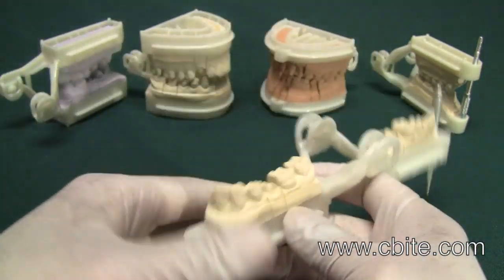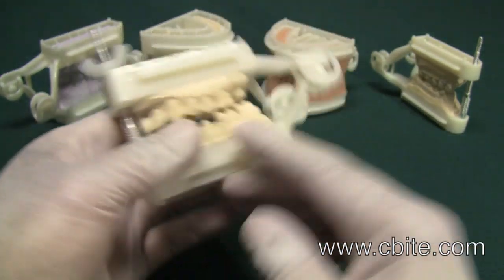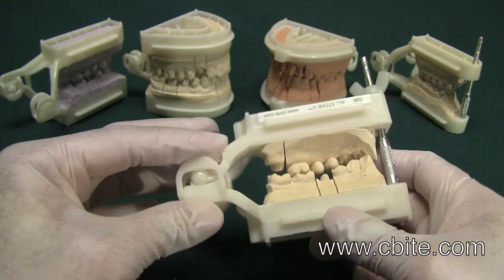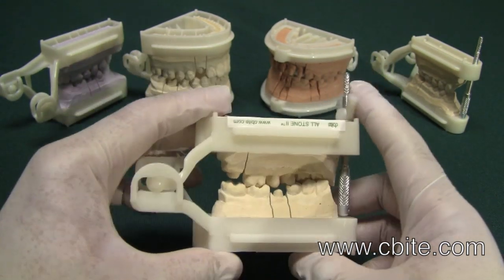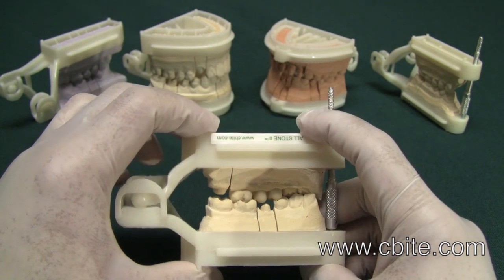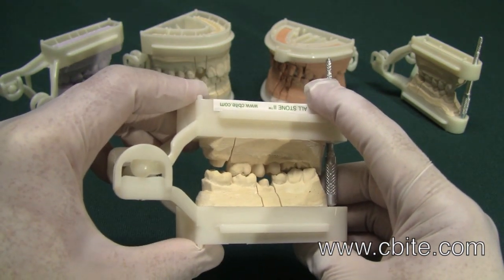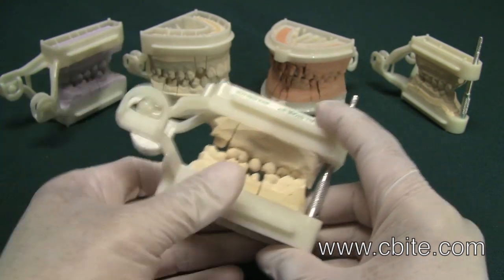To illustrate this, we have reinforced the ball and clasp design in the arm so it's a lot more stable. If you press down, as you can see, there's a free end unit in the back. If you press down, you don't get that bounce. It's extremely stable in the back.